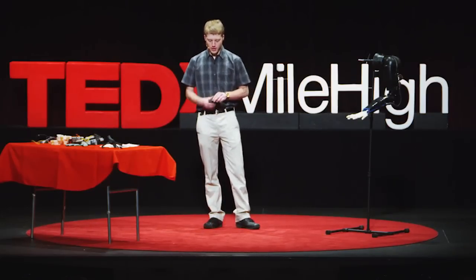I didn't stop there. I wanted to make something bigger, better, and more functional. I started learning modeling software and wanted to get this made physically. I was going to go with CNC milling, but the cost was outrageous. So there was this new evolving technology coming into play — 3D printing. I sent this to a few companies and was getting quotes upwards of $500 just to print the hand.